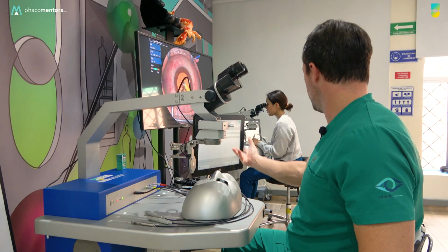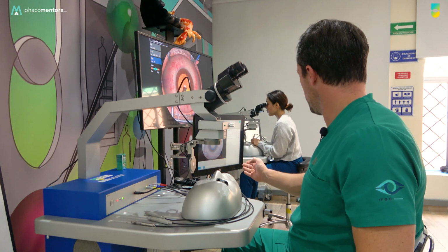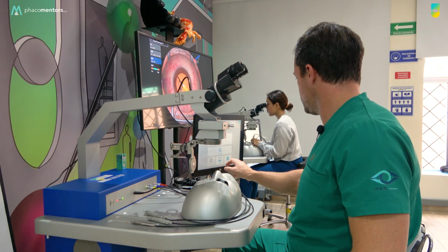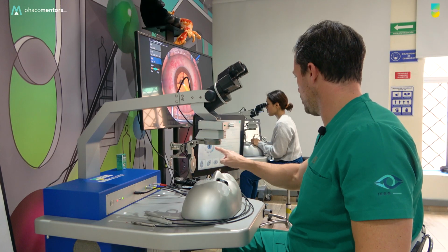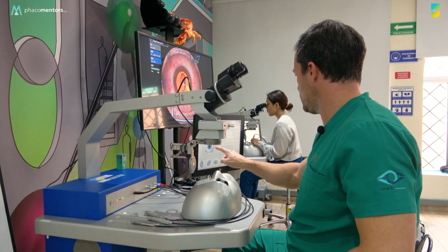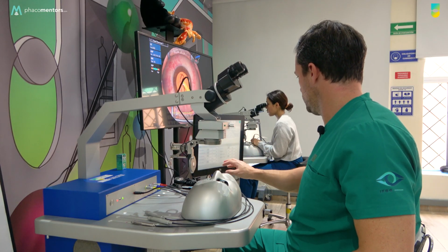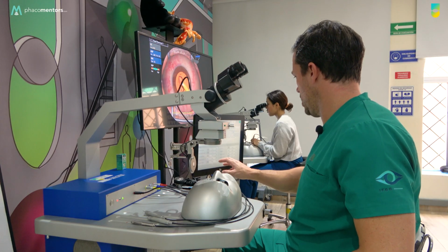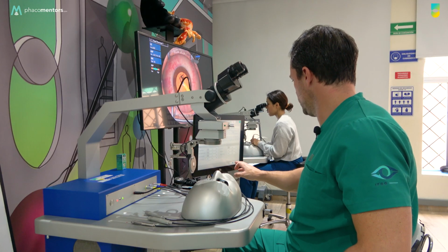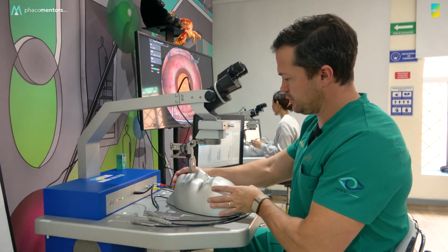I need phaco. Look at the score, remember, look at the score, what happened. Look at the time lapse, which were the mistakes I did and I need to improve. Now we can actually go back to the settings. Okay, we can put a frontal approach. We can put where the main incision is going to be, paracentesis first and the other paracentesis right here. And here, the last thing I want to show you, which is very important for us, is, well, let's put the first surgical step, the hand biomechanics, which we really like. Let's put it in the frontal position.